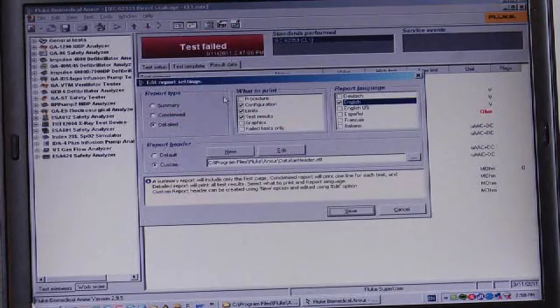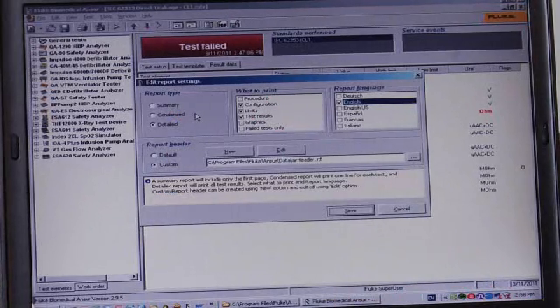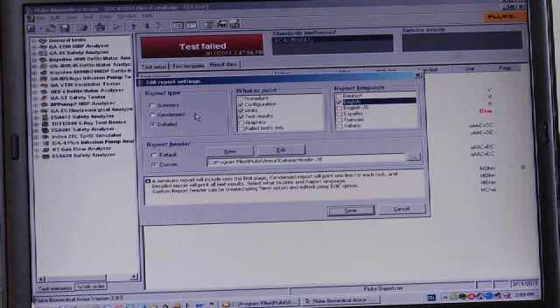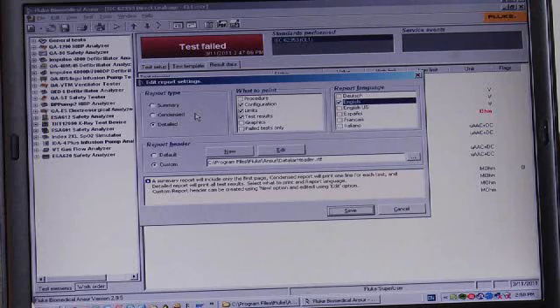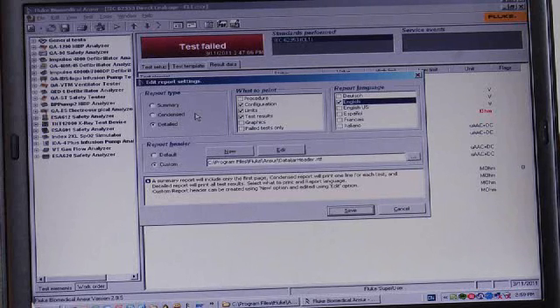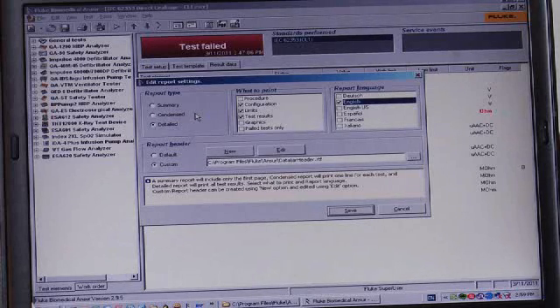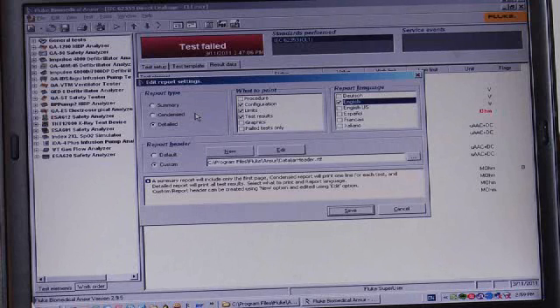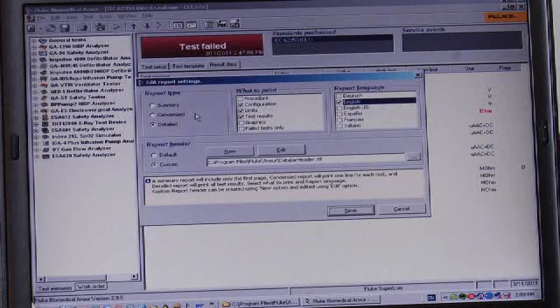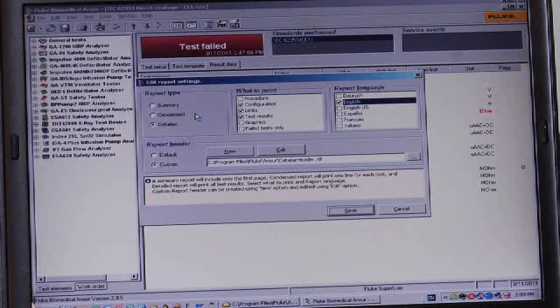In this test report settings window, we have the ability to select from three predetermined test report type layouts. The summary layout, which we will show you, is the same as page one of either of the other two layouts. The condensed test report simply shows the test results for each step in the test procedure. And you will see all of that information, but what we really want to show you is the detailed layout so that you can see not only the test results and each measured value, but the testing limits as well.